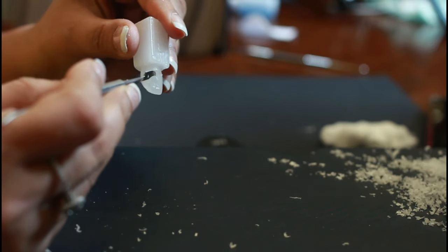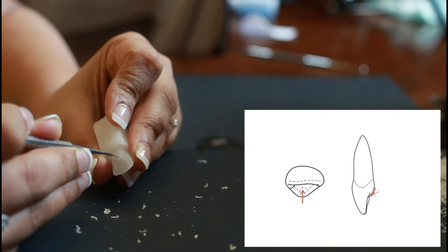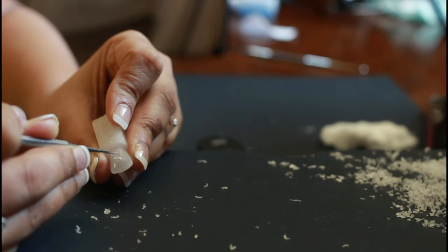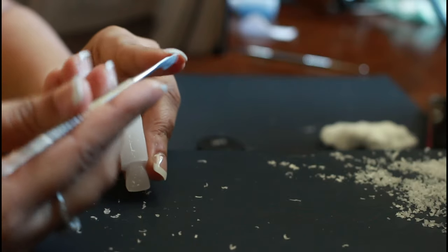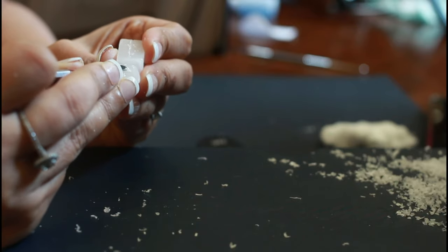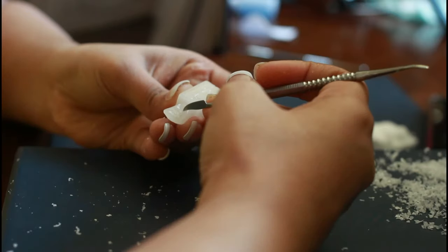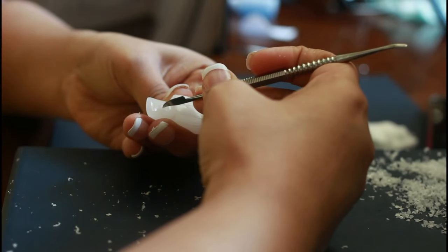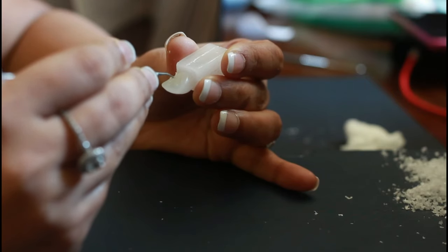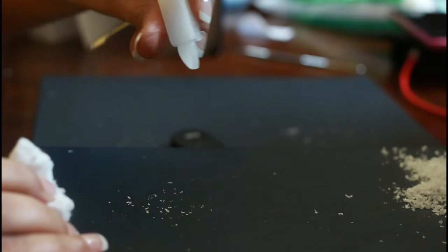To enhance the fossa, mark an inverted C below the cingulum and then slant the ditch it created towards both sides. If you have a carver with a little concavity, it will help greatly because it will slant the ridge naturally. We are increasing the size of the fossa by moving it towards the marginal ridges, so as to thin out the marginal ridge and increase the width of the fossa.